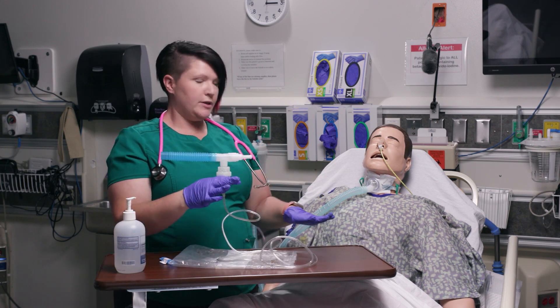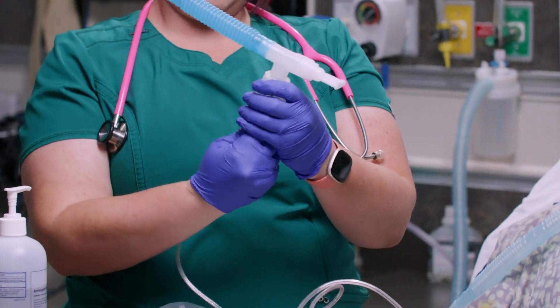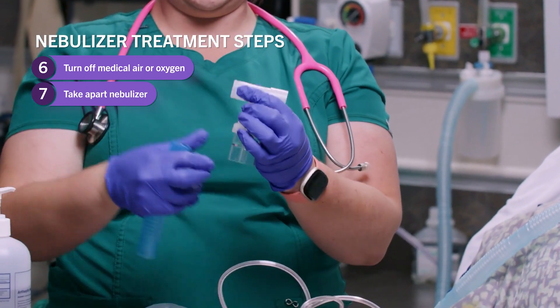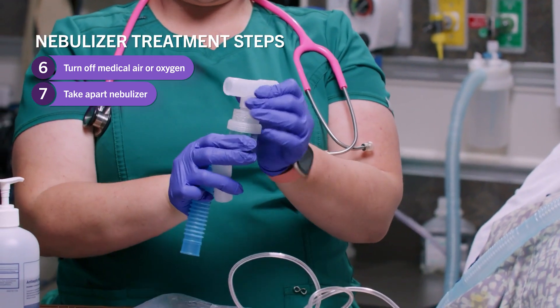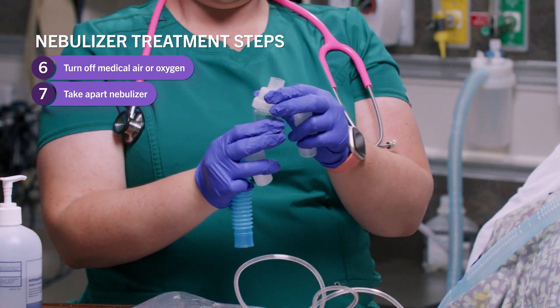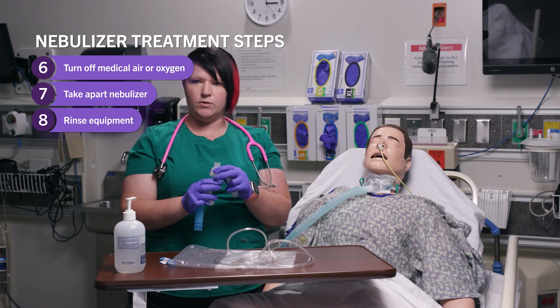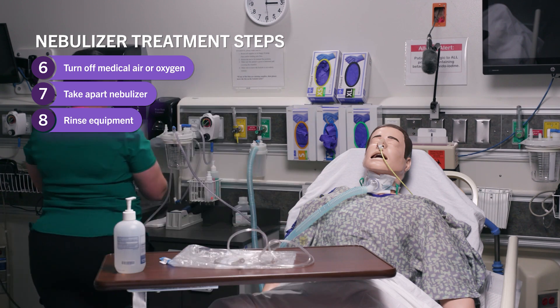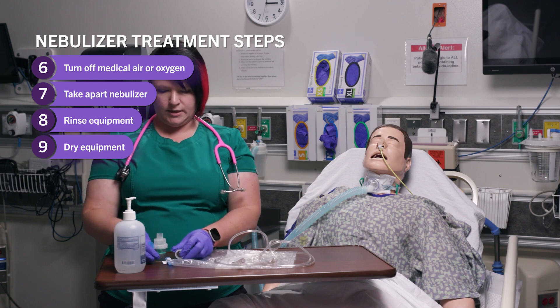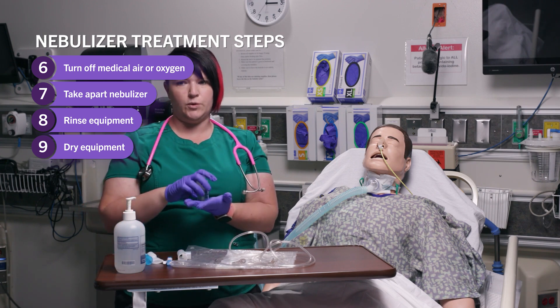Now that I've administered the medication, I'm going to take this portion off and take my nebulizer apart. It is extremely important to rinse this equipment off — there is a sink on either side of the bed. Once you've rinsed it out, dry it off or set it on a paper towel to let it dry. It is per patient, so this equipment stays in the patient's room.